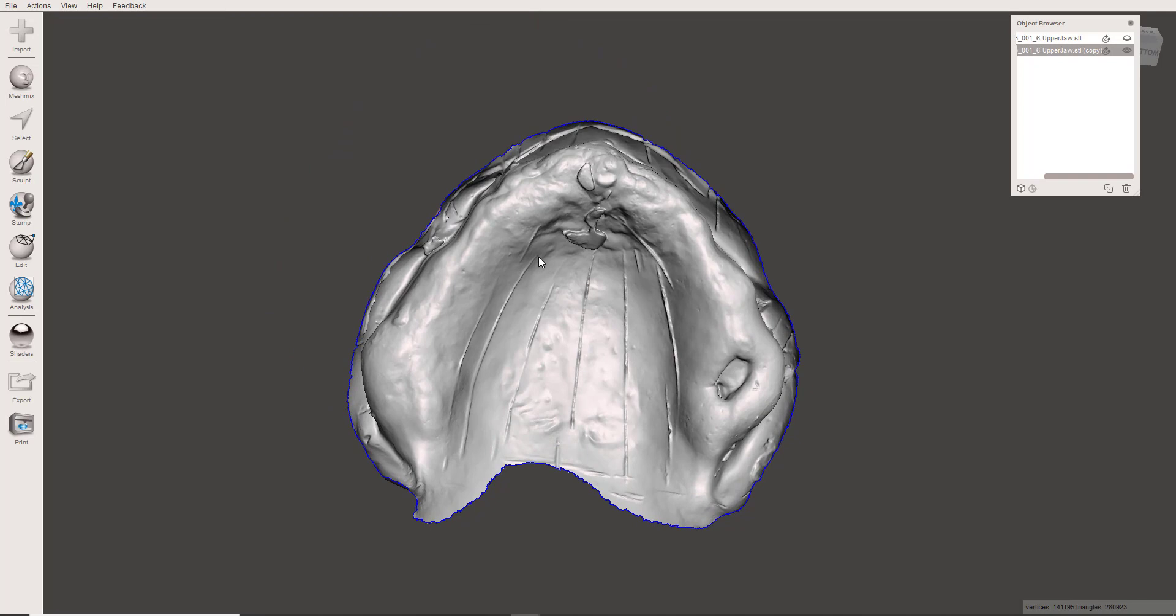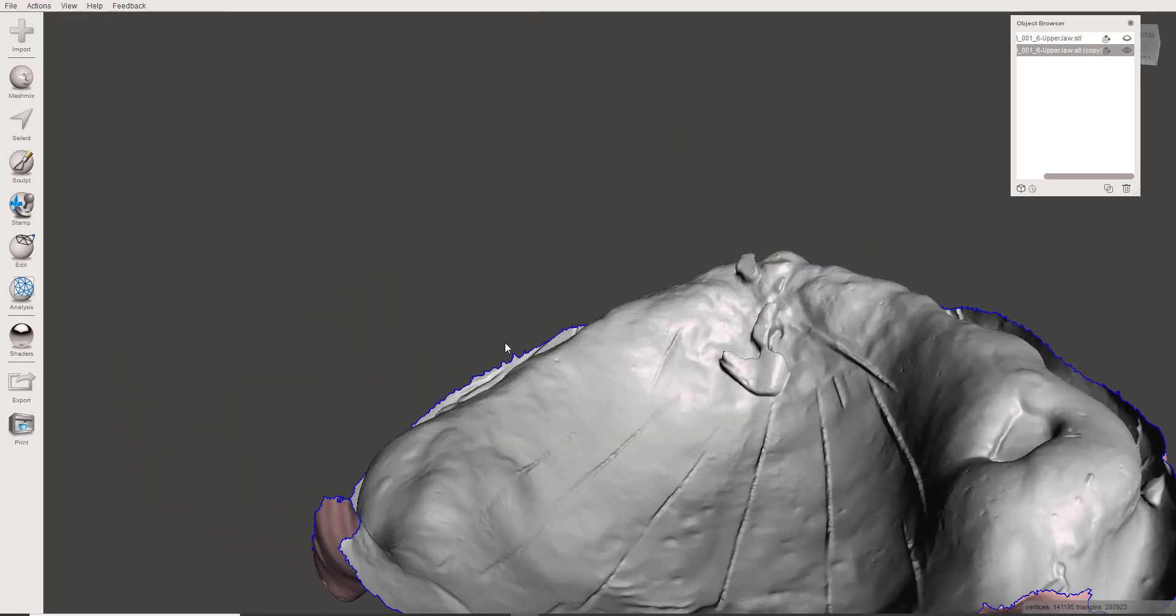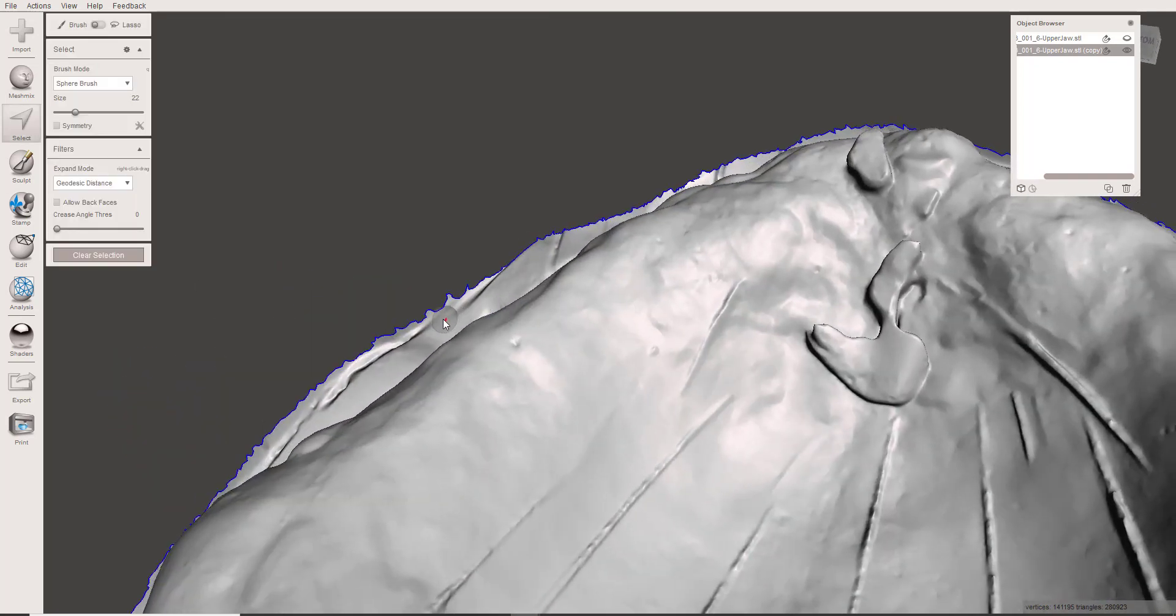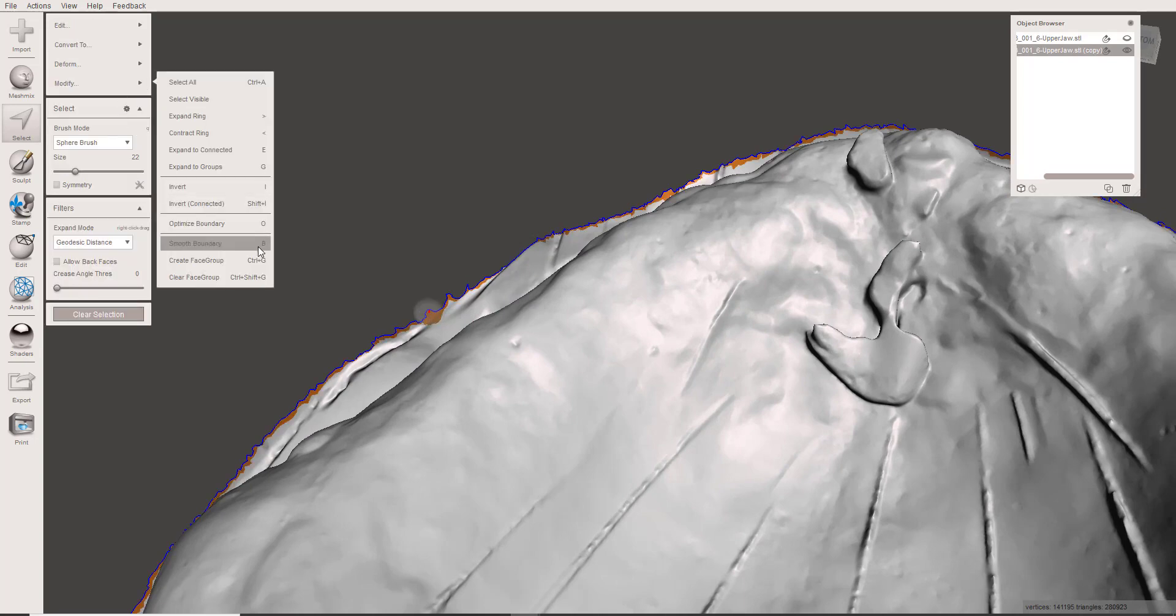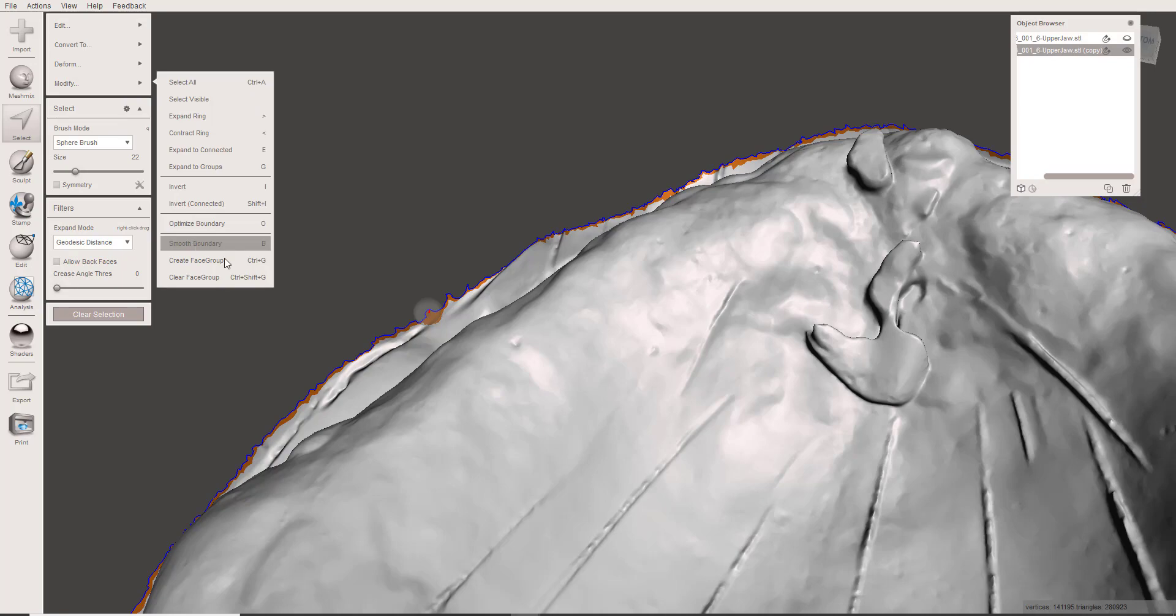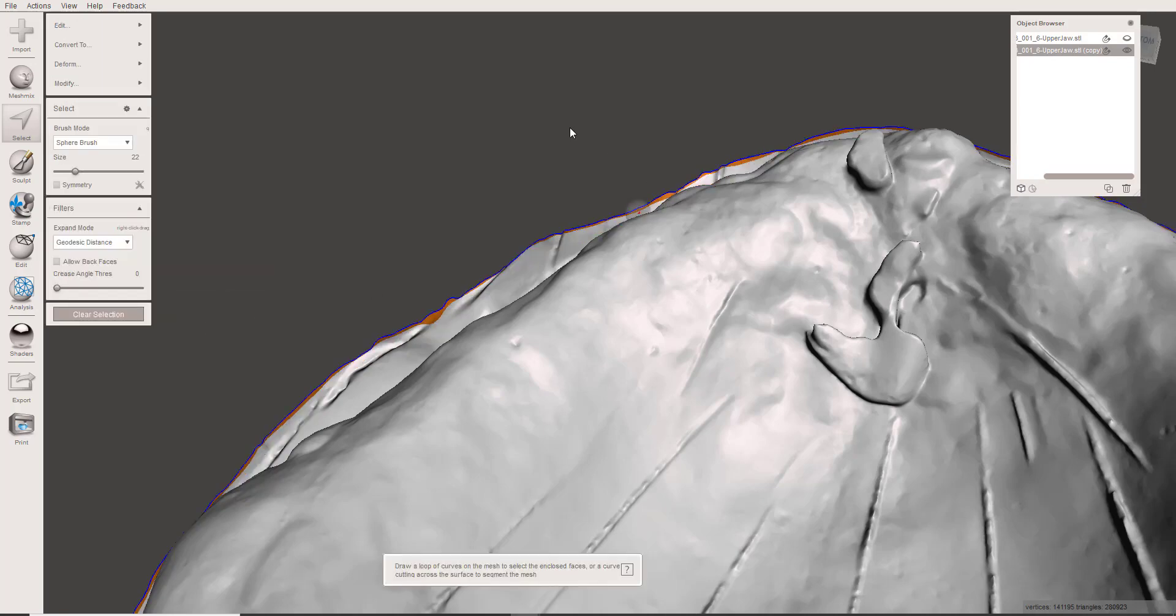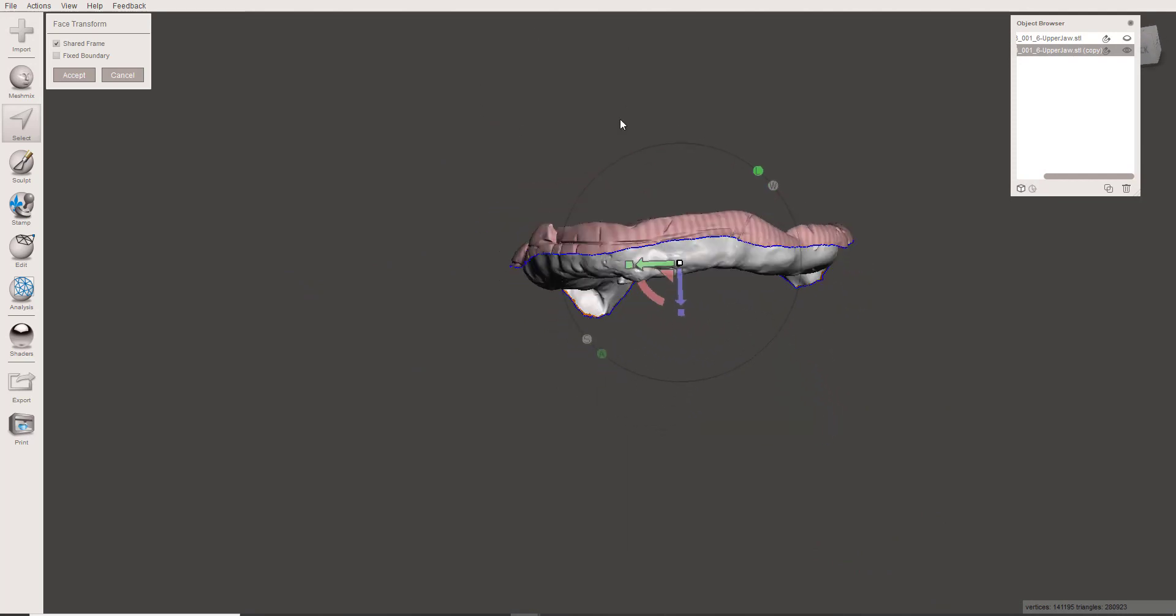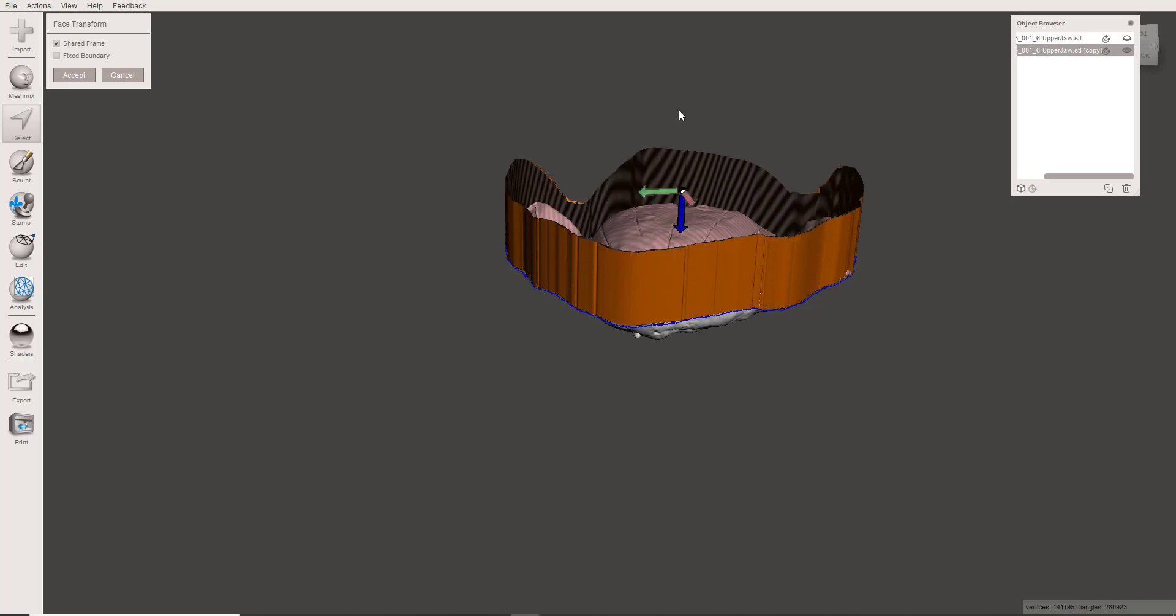Normally, if I was doing this with a tooth-borne model, I'll show you what I would do. I would come up here, select the border, optimize the boundary, and then smooth the boundary so it's nice and smooth. With that done, I would hit T for transform on the keyboard and just extrude the entire boundary up.